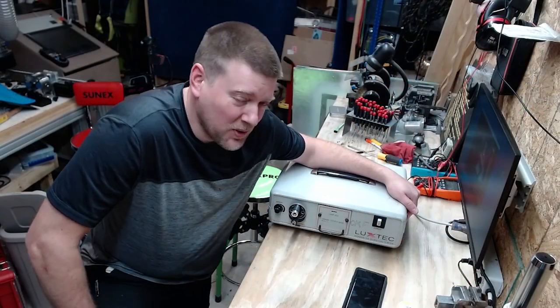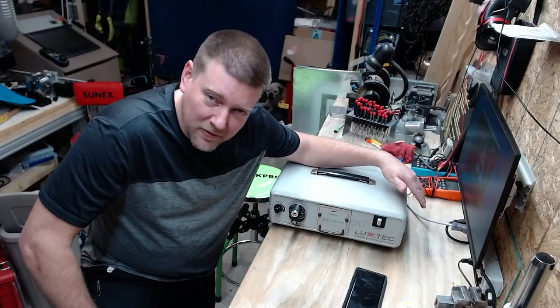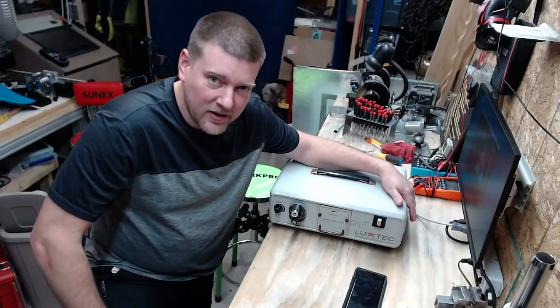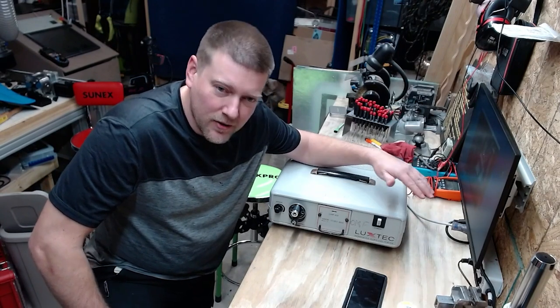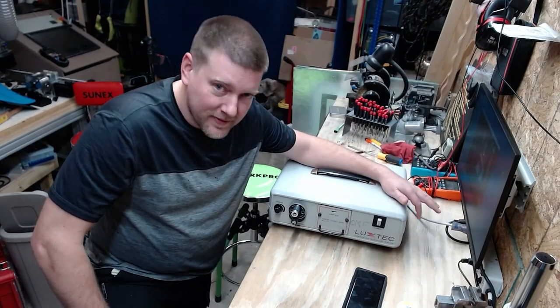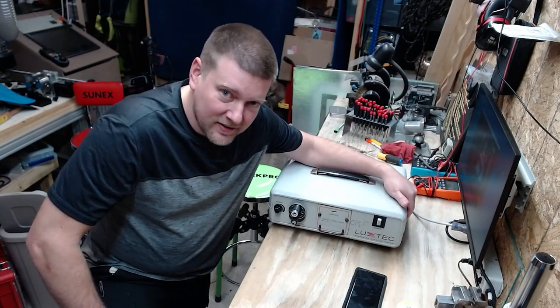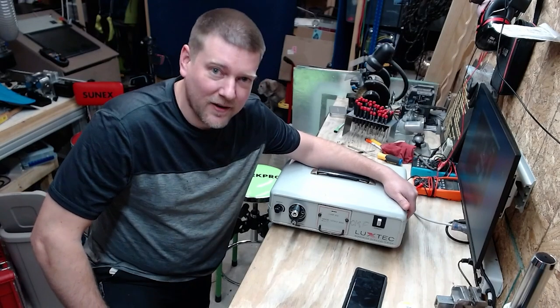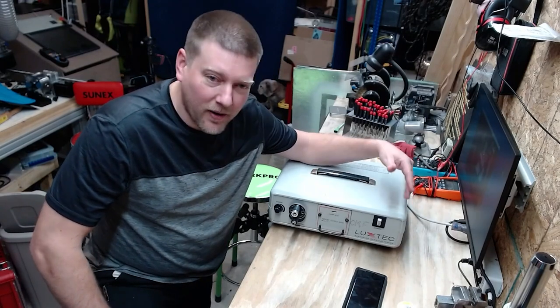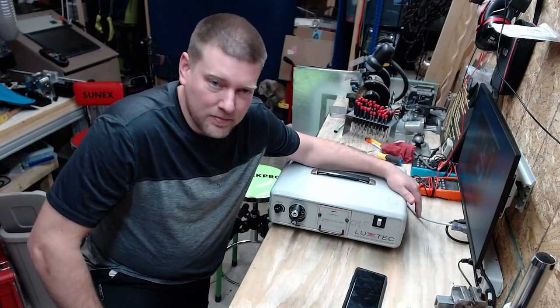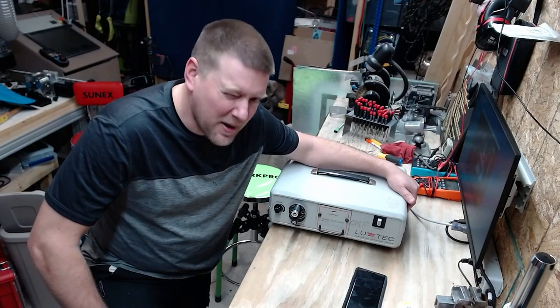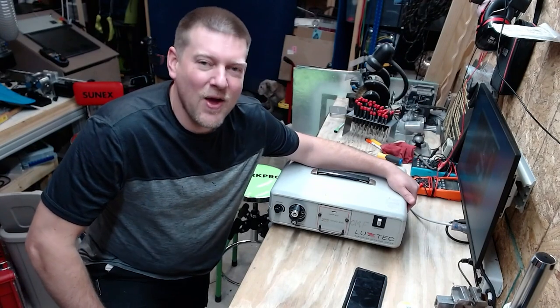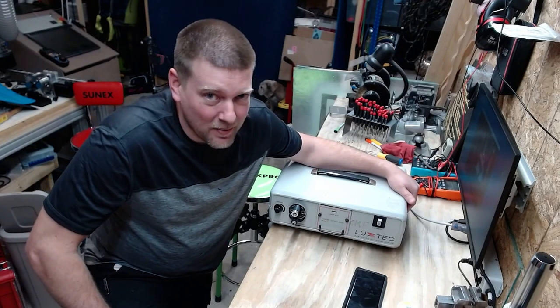I know it looks like it's old, but it's still a staple of surgical areas and small procedure areas throughout the world, the Xenon Light Source. Let's take a look, I'll tear it apart, and we'll see what makes this bad boy tick. Coming up next, right here, on Better Biomed.